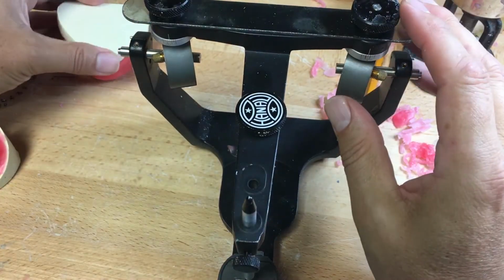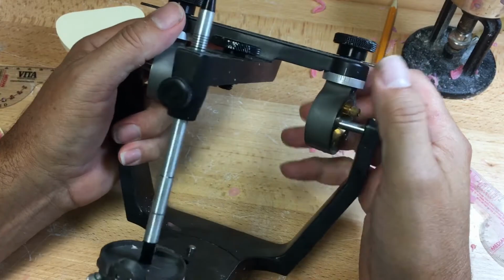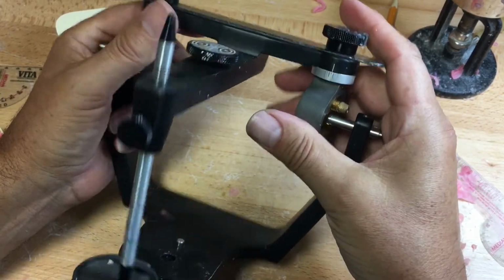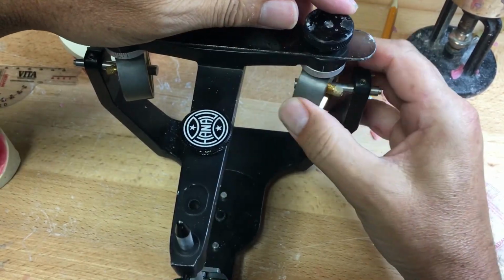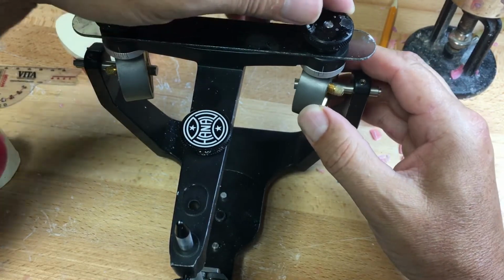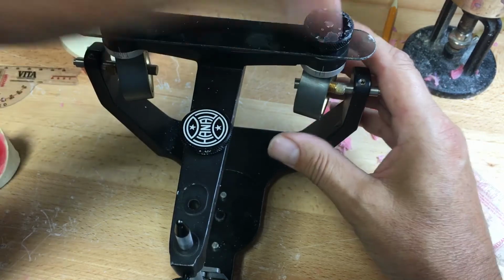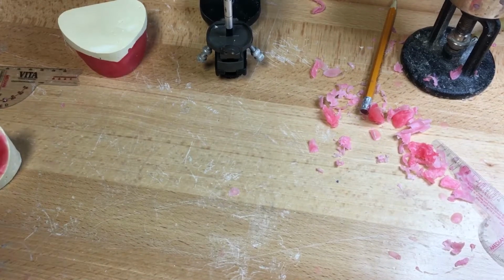When we look at our articulators, the first measurement here is between 0 and 25. This is Bennett shift. And Bennett shift is this angle here, the lateral angle, the lateral shift. For argumentative sake, we can set it at 15. It'll most likely stay there for a very long time. We can do some math here. There is a formula for the Bennett shift.